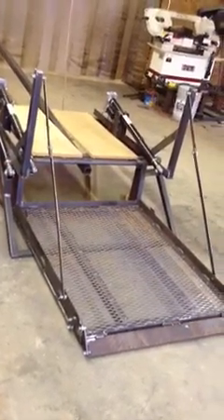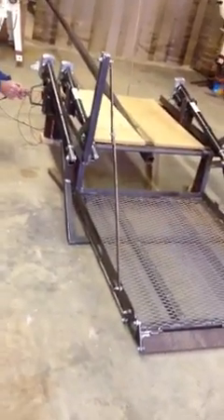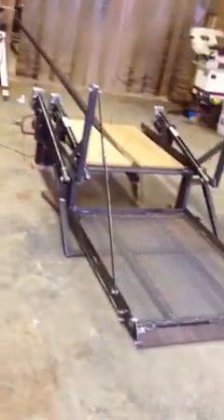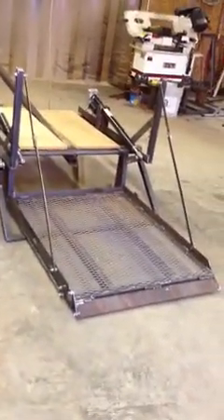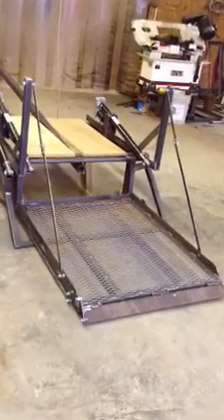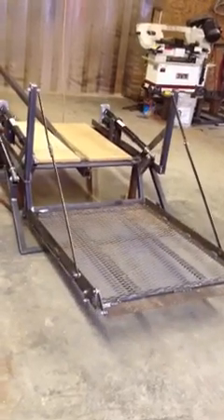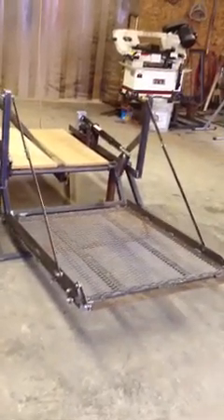This is in the fully deployed mode. Now we're going to go to the transport mode — you've got to pick it back up first. You pick up the platform and bring it back up to level. Of course, this is unpainted, unfinished — this is a rough finish. When you paint these things up, they're going to look real good.